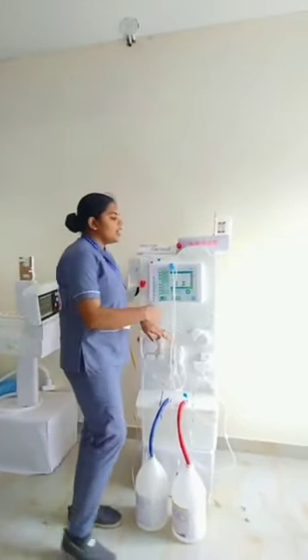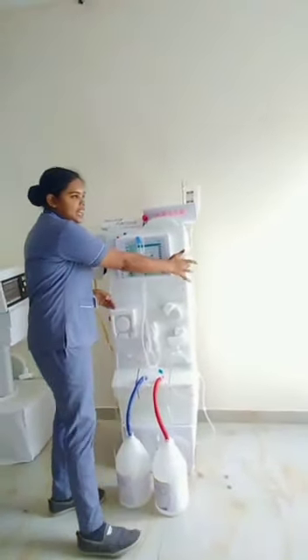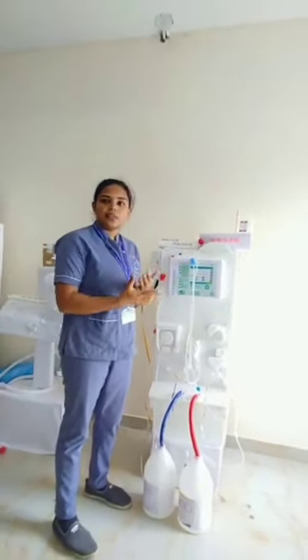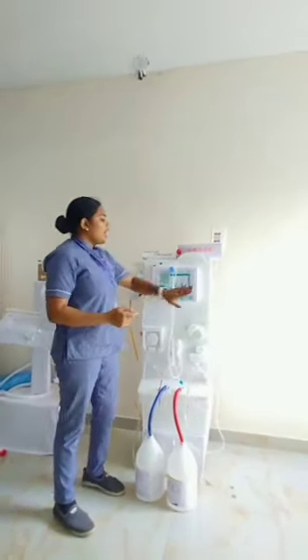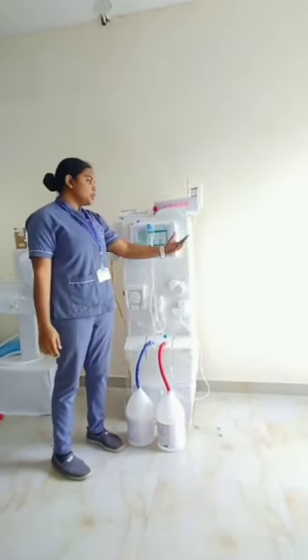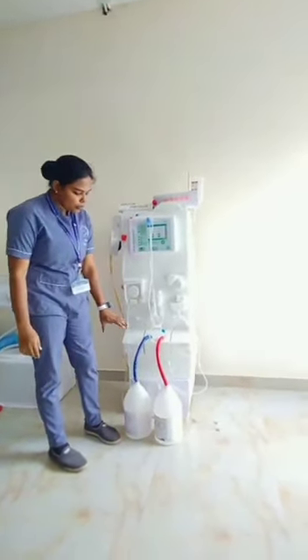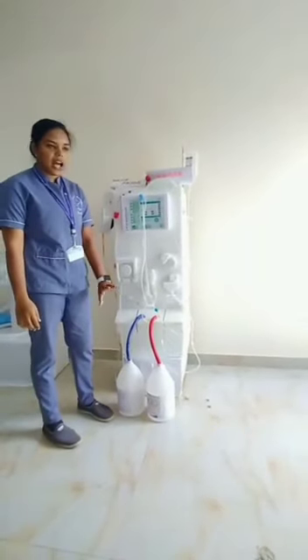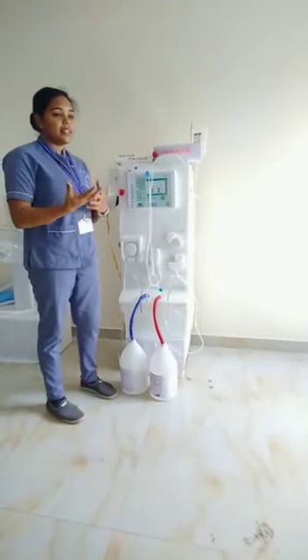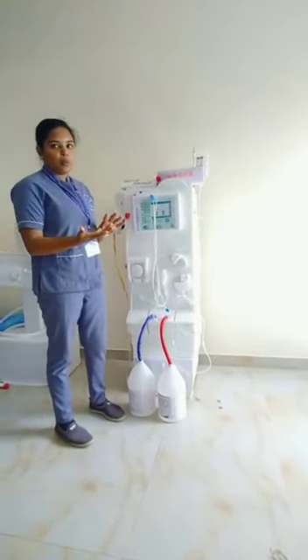Here one component is the dialysis unit where the actual dialysis process is working. The dialysis process is carried out with the help of two things — bicarb and acid — which maintain the acid-base balance in the machine and the body.